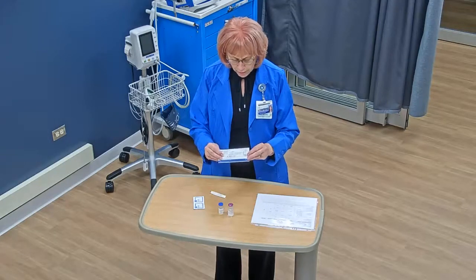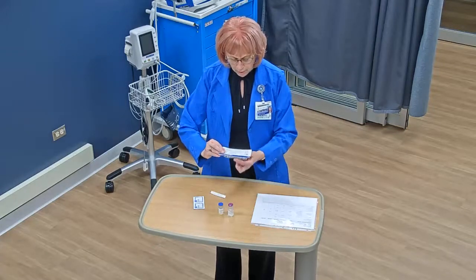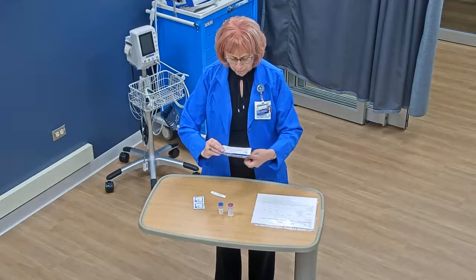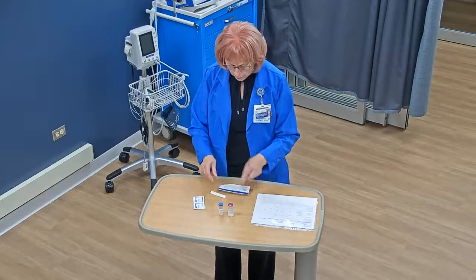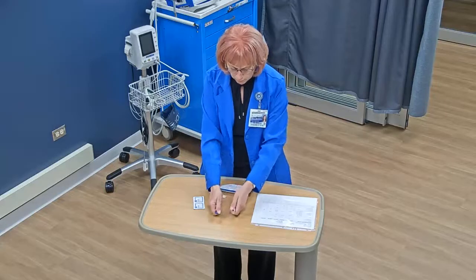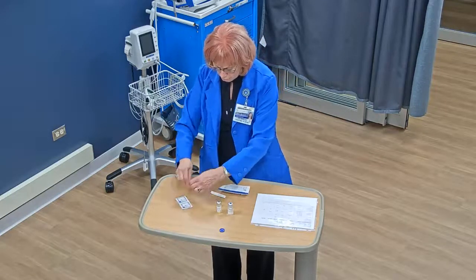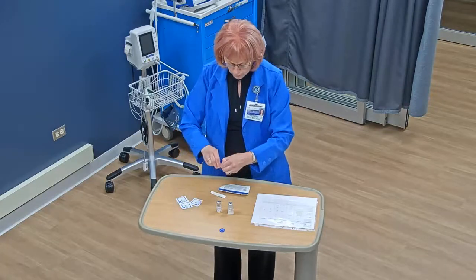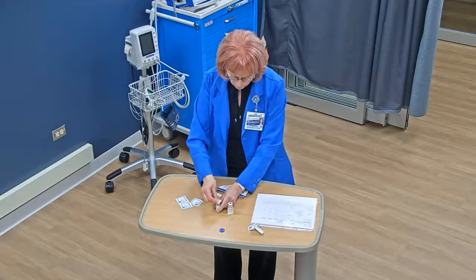When I open this package, I like to open it this way because it makes like a basket for the syringe, a place for it to rest. I'm going to set this down and first open these vials and clean the tops of them off. The two tops are removed and I clean off the rubber stoppers with alcohol. I open my alcohol wipe and I scrub those.